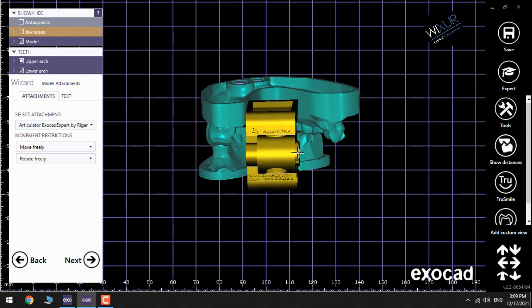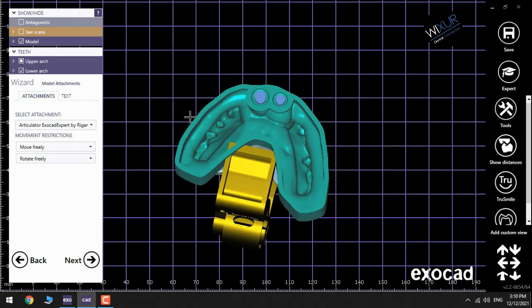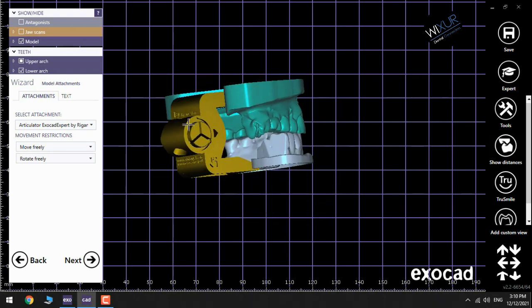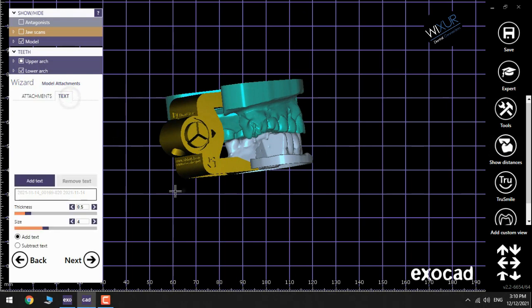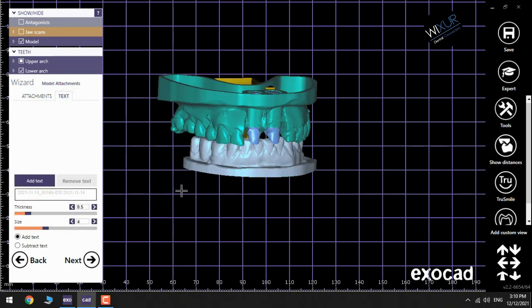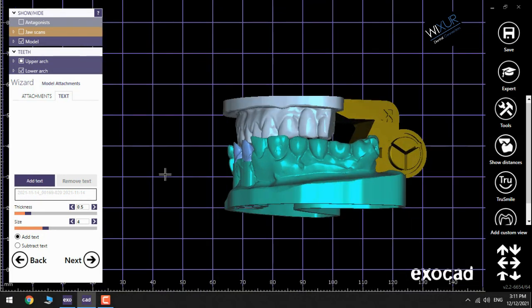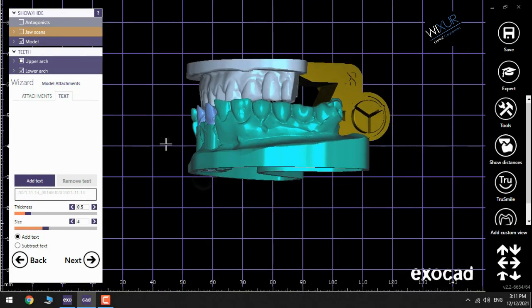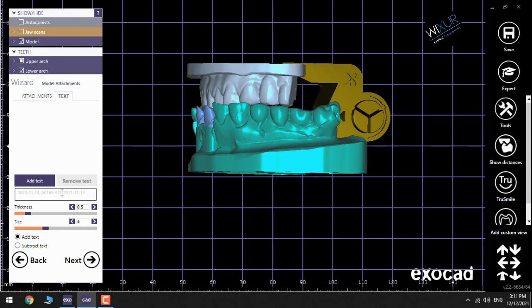This is good. And in the field text you can add your label that is usually the doctor name, dentist name, patient name, or for example order number. Write the dentist name and the patient name to put on the model.